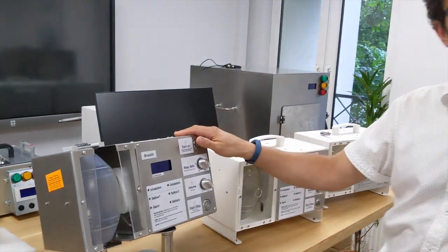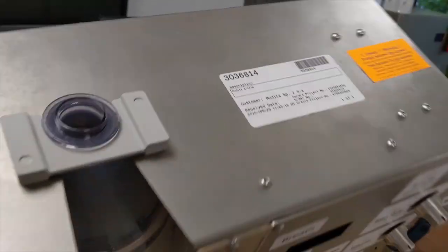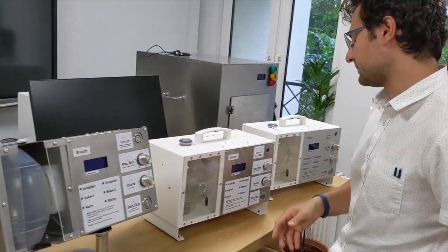This is the first generation that has started the testing. It still has even the stickers from the laboratory. So this was the first electrical test for the device.